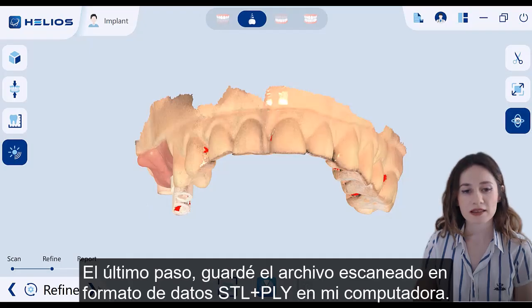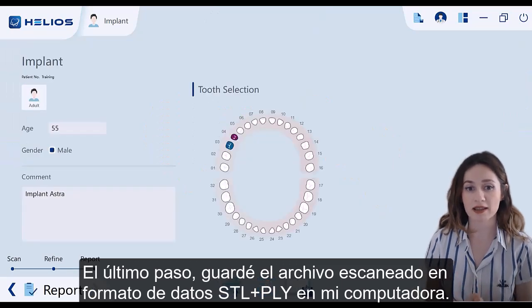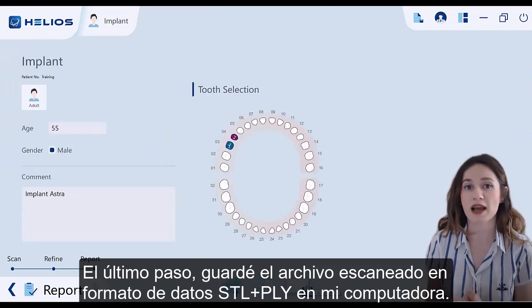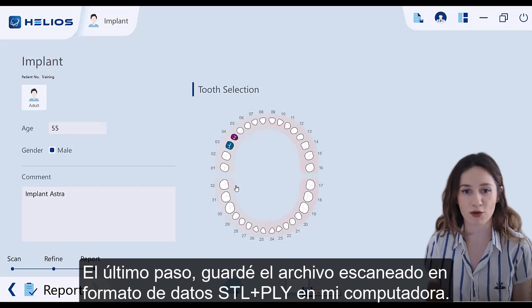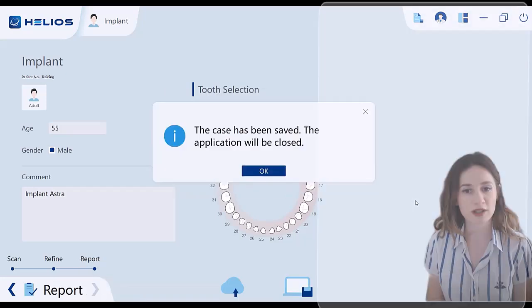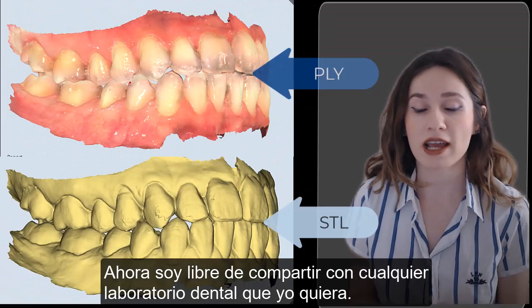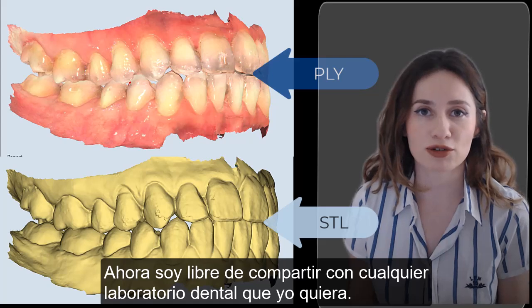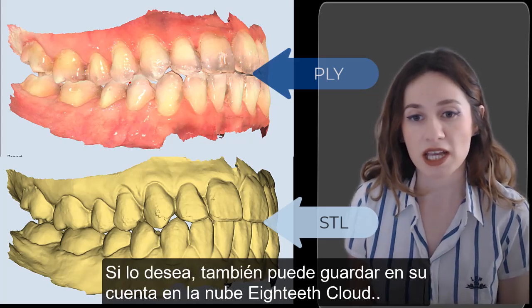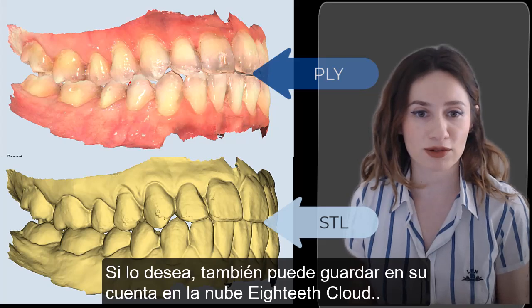Last step: I save the scanned file as STL plus PLY data format into my notebook. Now I am free to share it with any dental laboratory I want. If you like, you can also save to your cloud account.